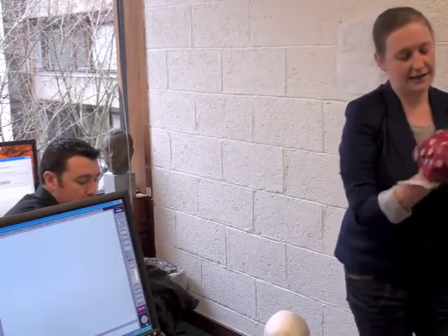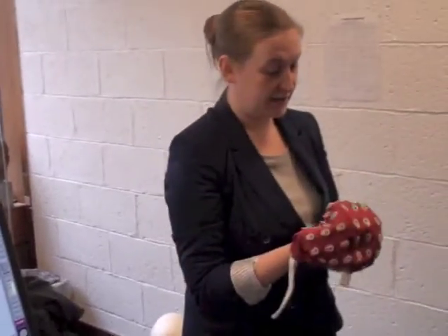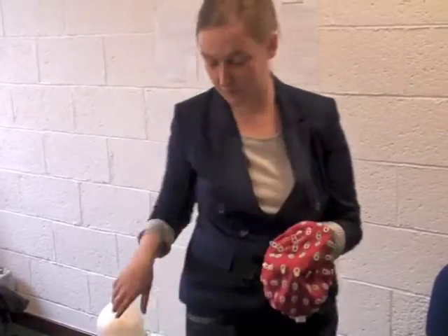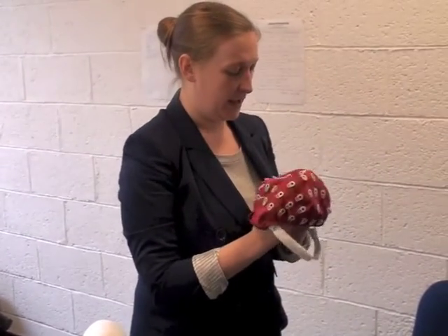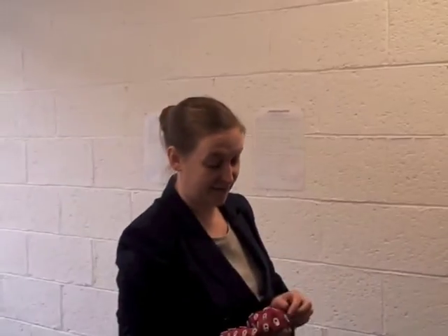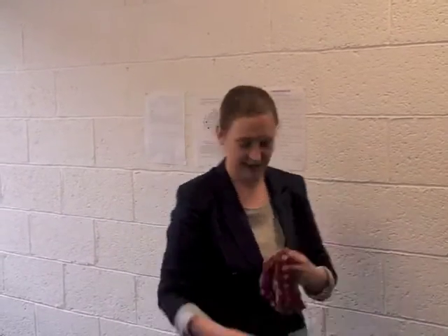The cap has colour-coded and labelled and numbered set slots for the electrodes to go in in a minute. Again, that's written down here about where these should be, but it's basically the ones that say FP and F are the ones that go in the front, okay?